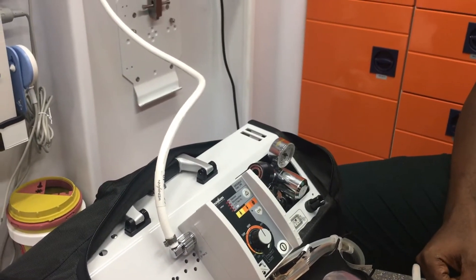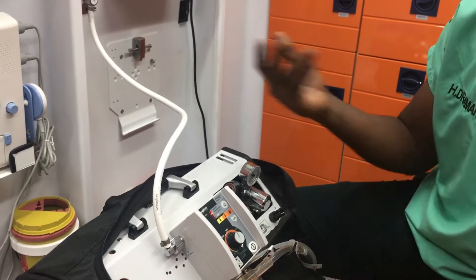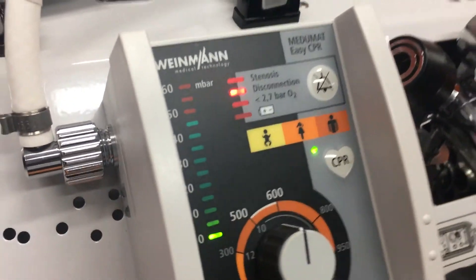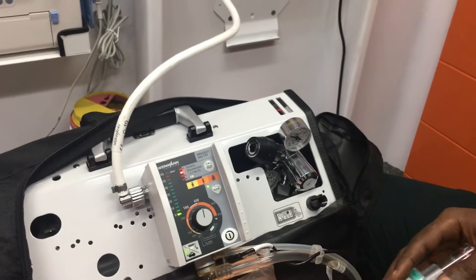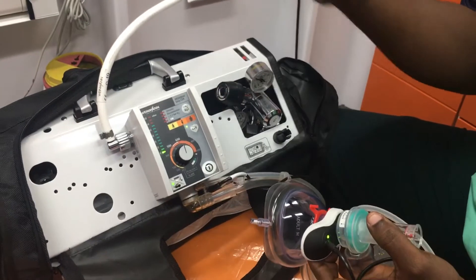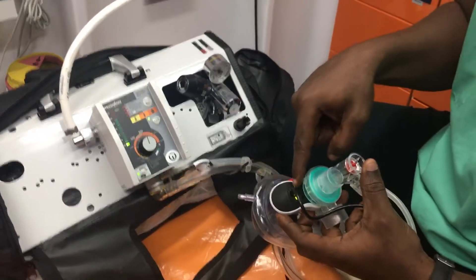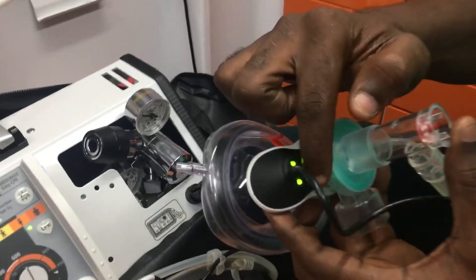Let's operate in CPR mode. For CPR mode, we click on this button and ventilation is triggered manually. We advise that two rescuers are used in CPR mode. One rescuer counts the 30 chest compressions while the other triggers the two rescue breaths using this black knob, which has two green lights.